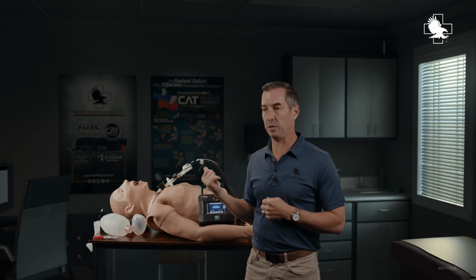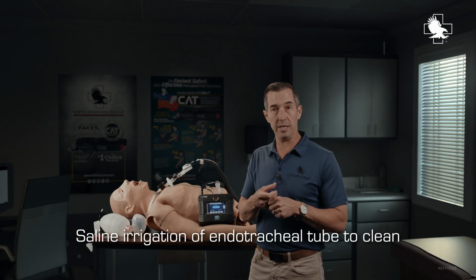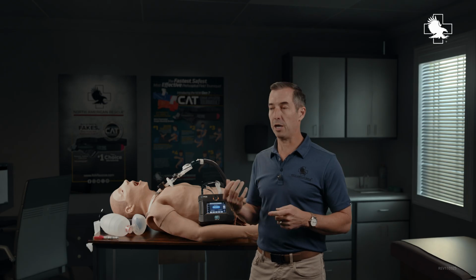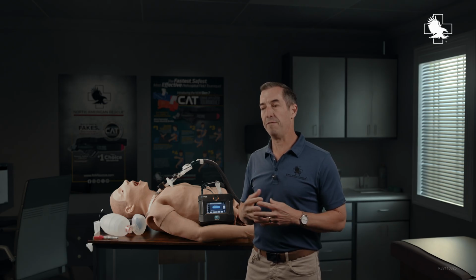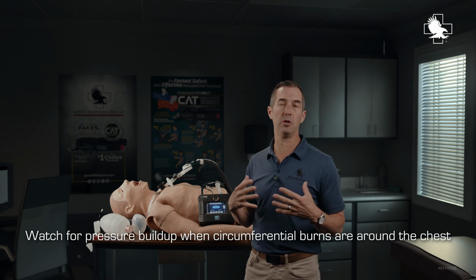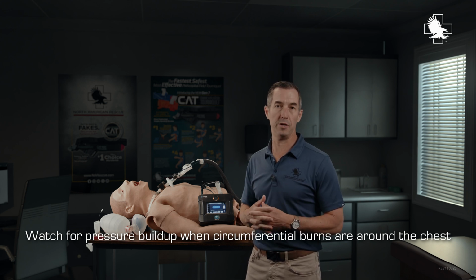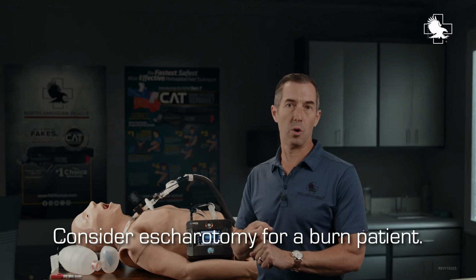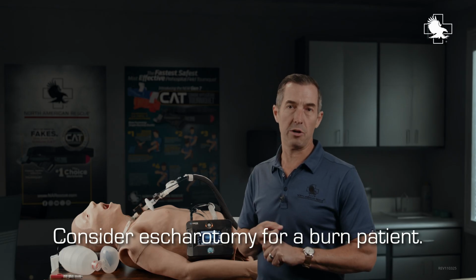And then we want to look for obstruction. So that'll again be with suction. We can irrigate, so we can put some saline in the endotracheal tube and then irrigate that out. Sometimes that helps break up a mucus plug. And then finally, patients with circumferential burns around the chest, they can build up a large amount of pressure when you're ventilating them. So if you're getting that high pressure alarm, it's a burn patient, and you're confident that it's not a problem in the tube building up pressure or a tension pneumo, then it's time to start thinking about doing an escharotomy.